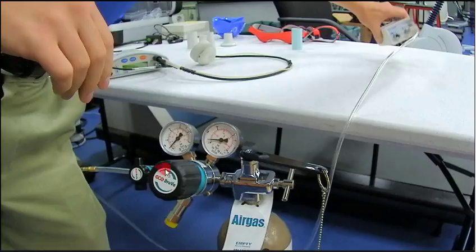And I just want to give you a little tip. Right here is the dial that's going to show the PSI and all the other gas measurement types. Basically, sometimes you'll move this knob right here in an attempt to change the PSI, and it's not going to change the gas, and you're going to get frustrated.